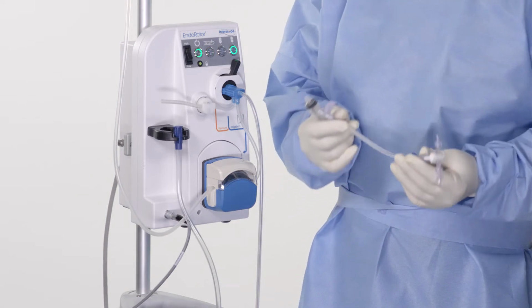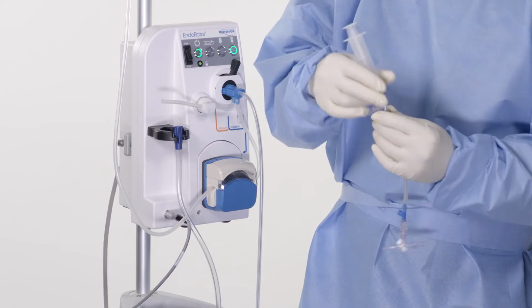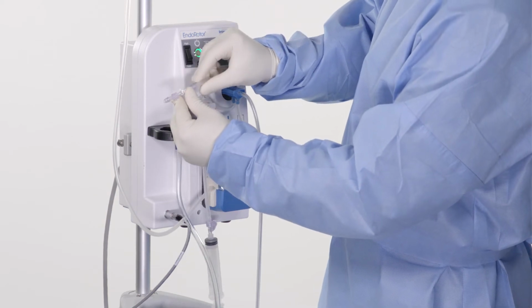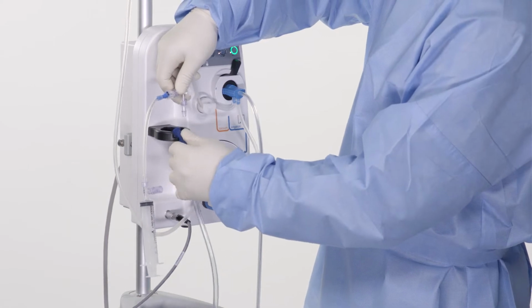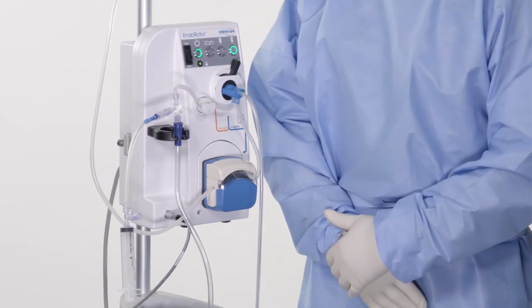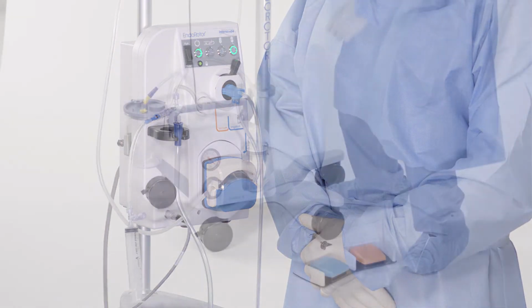Connect 20 milliliter syringe to the bottom portion of the purge kit. The smaller end of the purge kit must be connected to the vacuum tubing. The larger end of the purge kit will be connected to an independent vacuum. At any time, tissue may be collected if required by the user. If the physician decides to collect tissue, remove the purge kit and replace with a specimen trap.